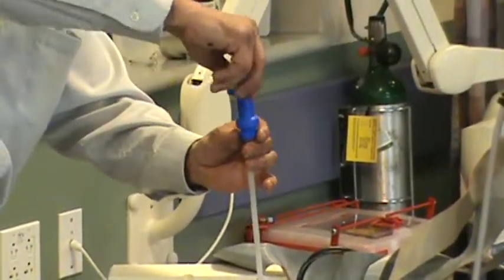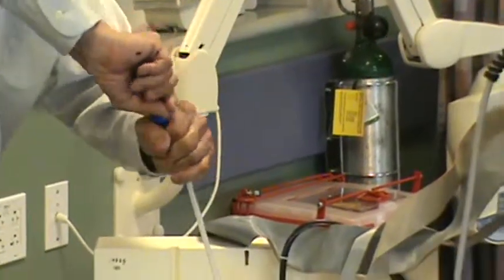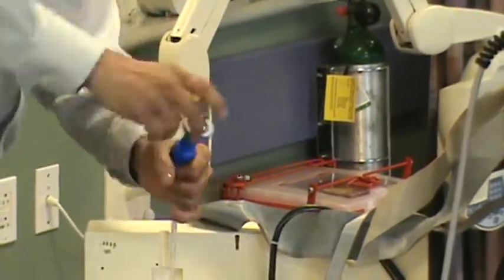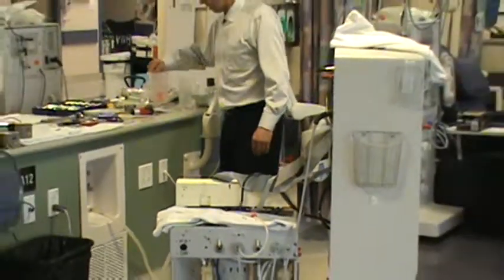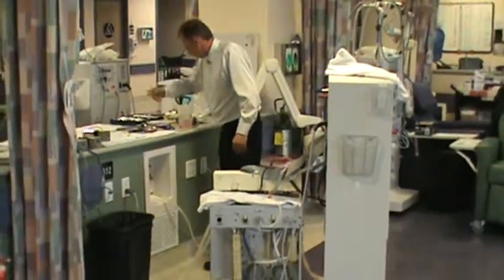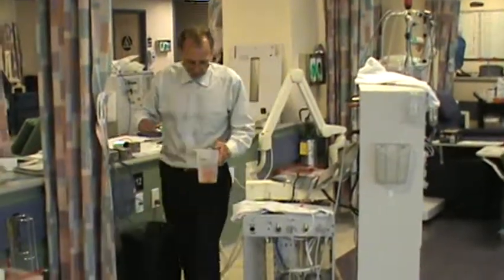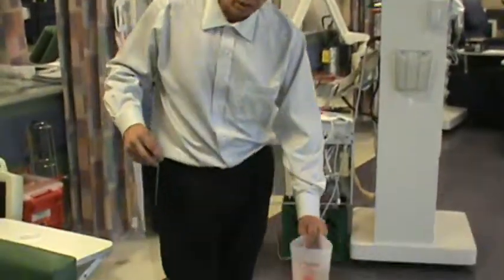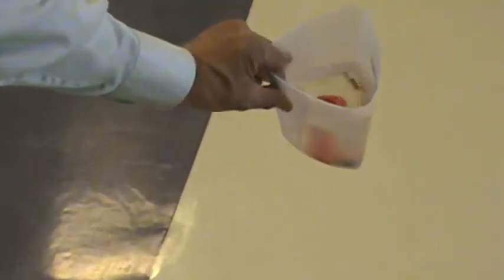Now we come down over the top, and this is exactly how you do the acid o-ring as well — the tighter the better. If you were to look in here right now, notice that in the bottom of this is rust. This is perfectly white RO water — that's how you can clean up some of your parts right there. Just get them cleaned up in RO water.